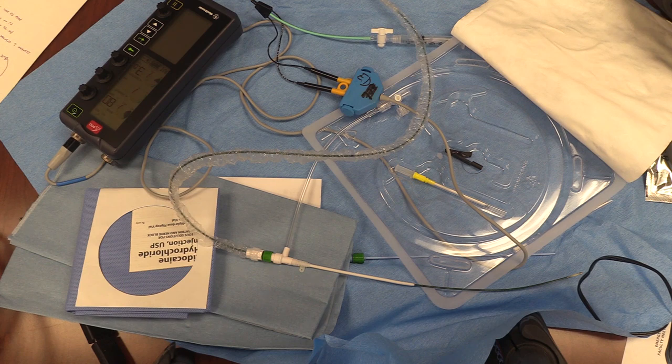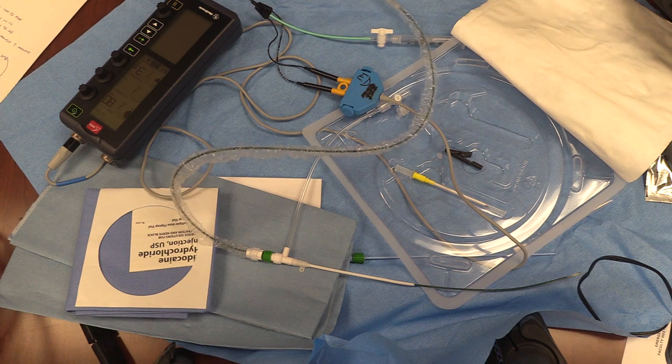You can look at the largest T wave on the EKG — the measurements are congruous. On VVI, if it senses both the QRS and T wave, it won't give any pacing at all even if the patient is at 40 and you set the rate to 80. You'd know because there are no mechanical captures at 80. The inhibition happens before it delivers a pacemaker spike, regardless of the amperage.